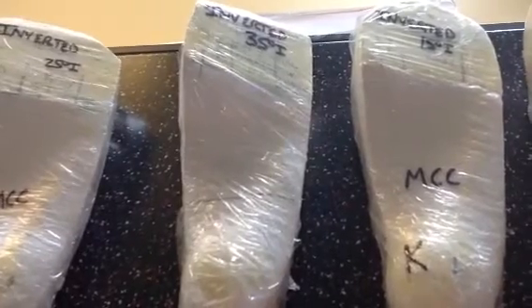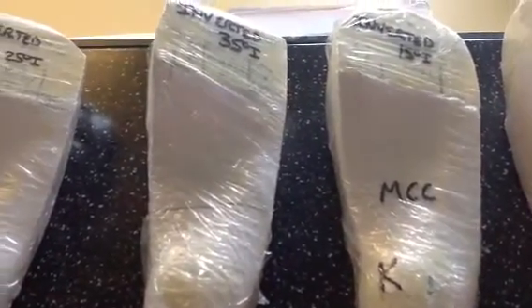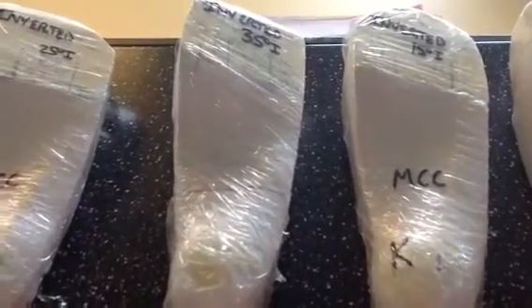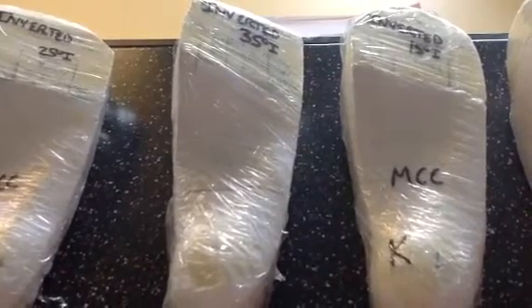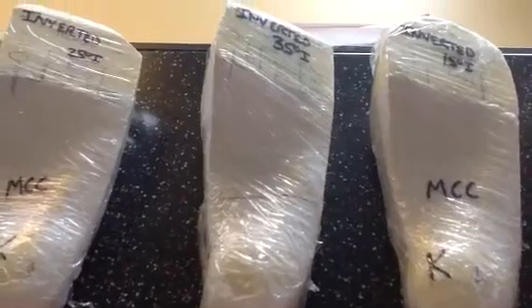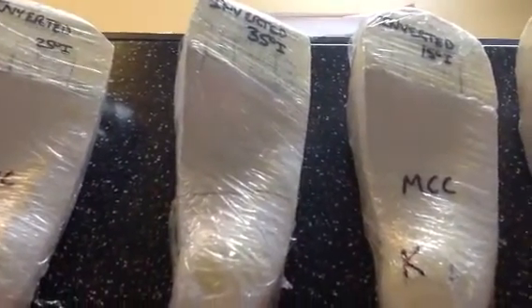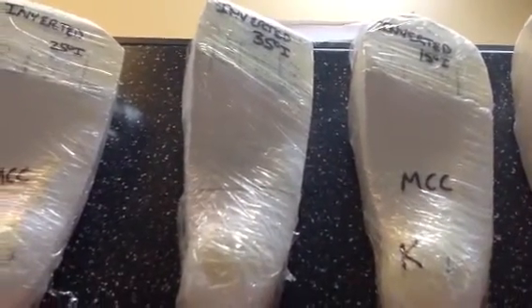This is my highest starting point on the inverted orthotic technique. If a child comes in with severe flat foot, or an adult with posterior tib dysfunction or severe pronation, I'll start with this — 35 degrees, which gives a seven-degree correction (35 divided by five). This is a very comfortable orthotic. With the inverted orthotic technique nowadays, I don't have to use the plantar fascial groove because of the flexible polypropylenes we use, and I can always grind out a groove if necessary.